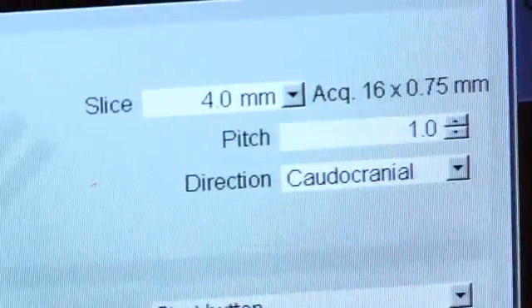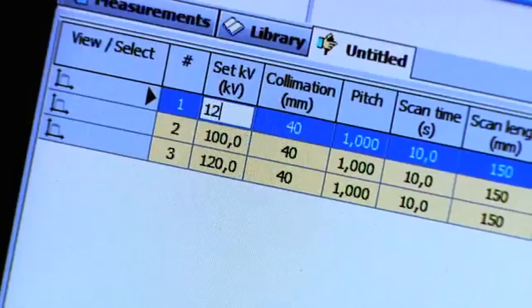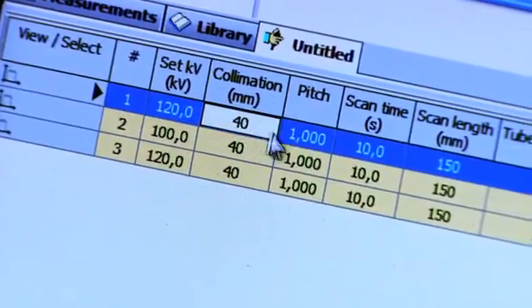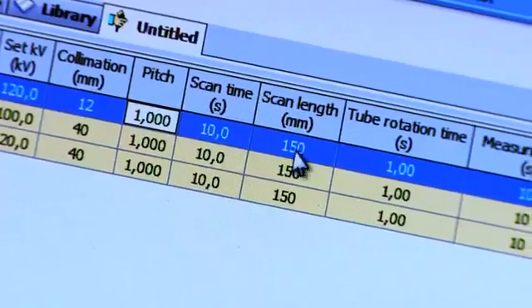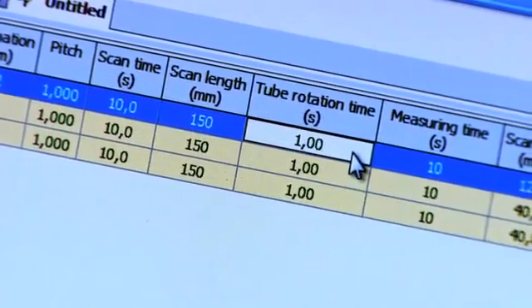Once the measurement settings have been set for the scan over the detector, you should enter the measuring parameters into Ocean again. Kilovolt. Collimation. Pitch. Scan length is not required for free in-air measurements.